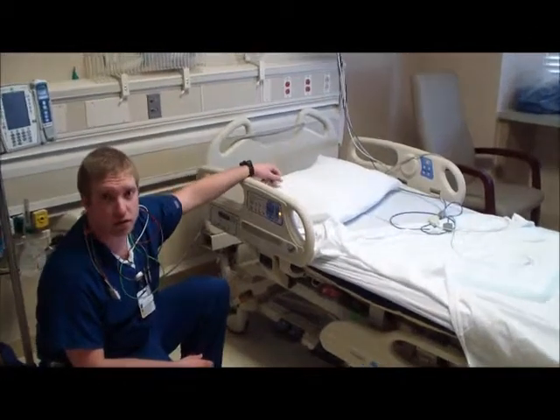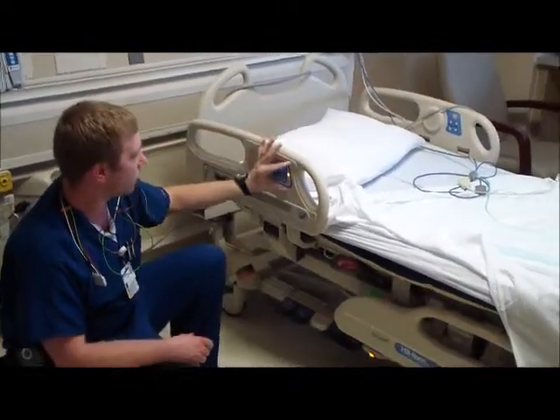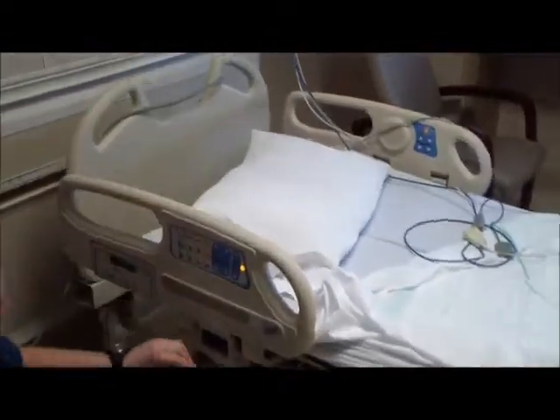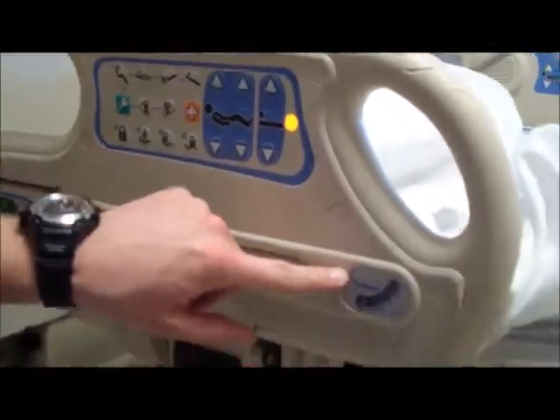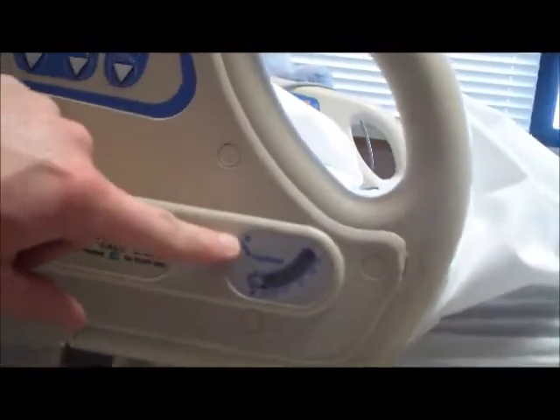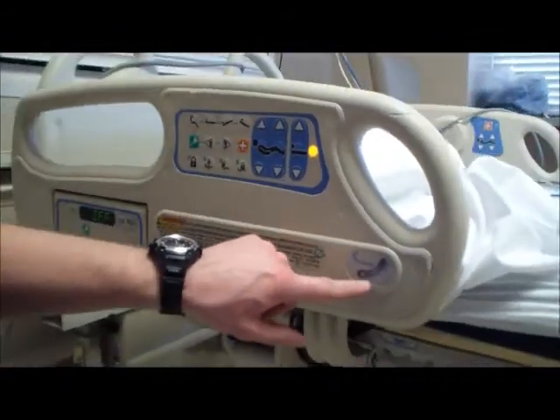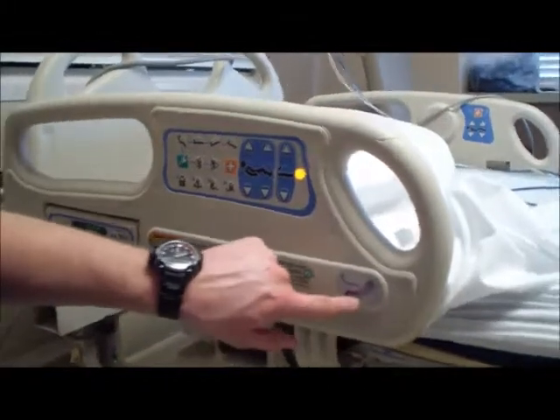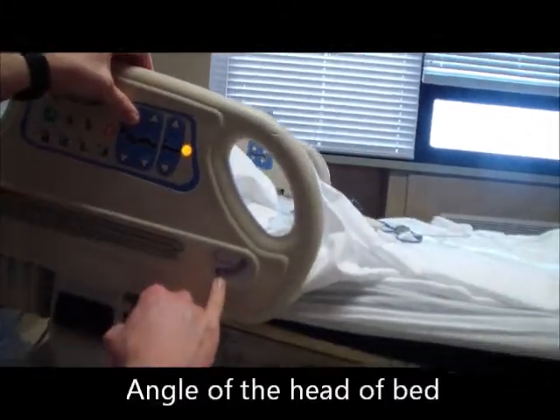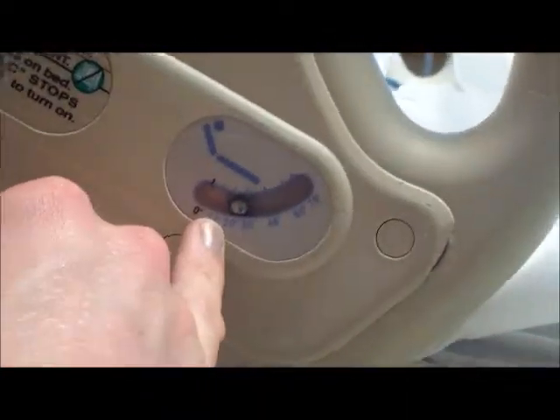So here's our standard hospital bed in either an intensive care unit or a floor bed. We have all sorts of options here for the bed. We also have a bed alarm system right up top here, as well as a height indicator for the angle of elevation for the patient's head. Occasionally you'll see one where a patient has to have their head up about 30 degrees. So this gives you a good indication as you bring the head of the bed up, the ball in there moves to give you a good idea what your exact height and angle is.